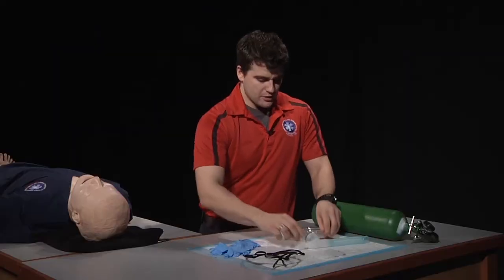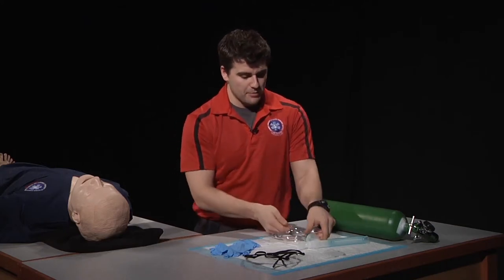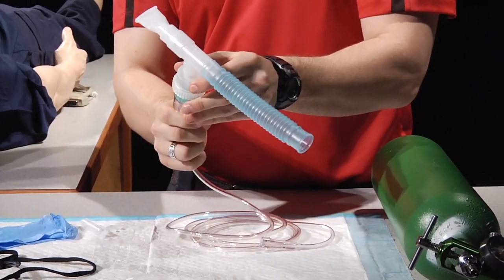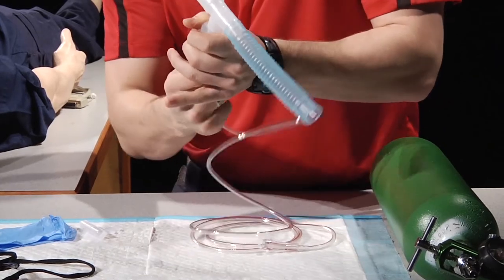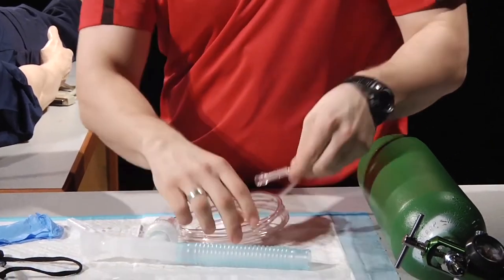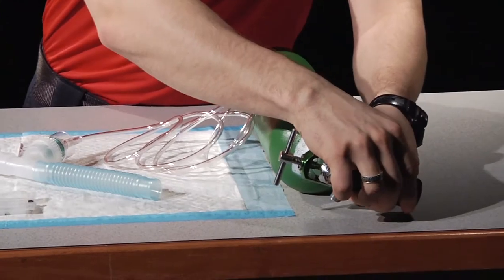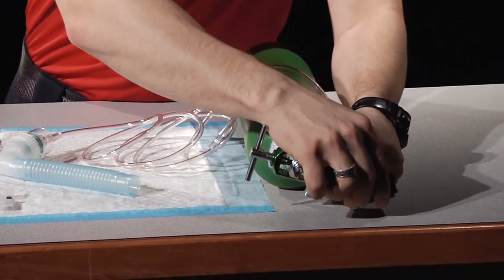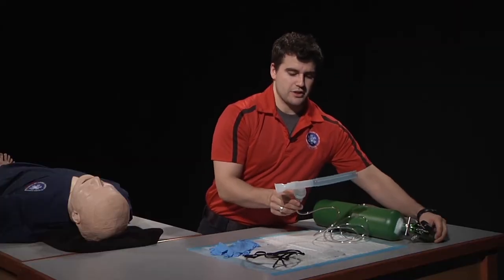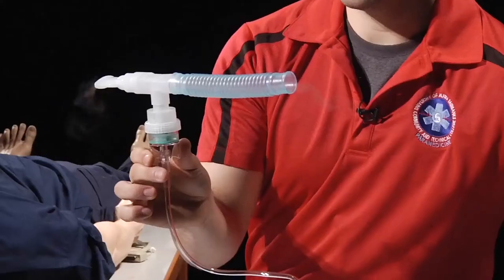Next is to attach the O2 tubing. This is going to go from the nebulizing unit to the oxygen tank. We're now going to turn on the oxygen tank until we see misting coming from either end.